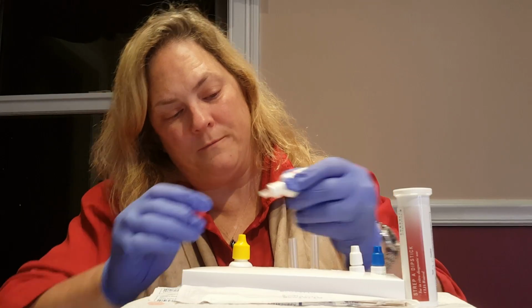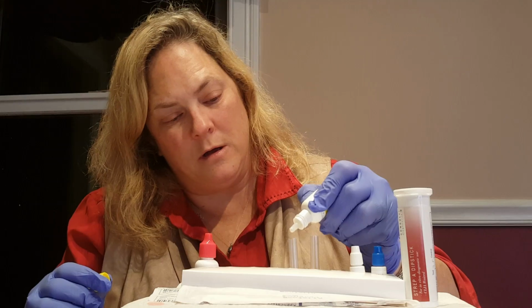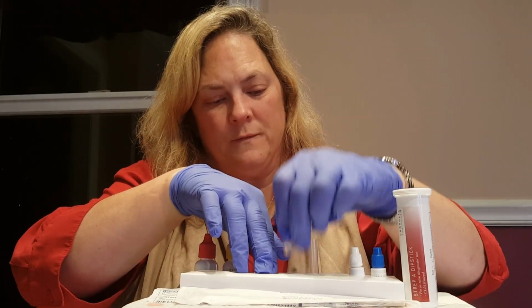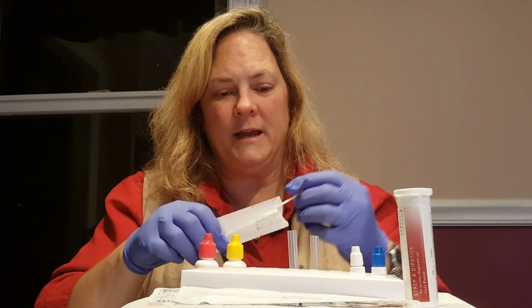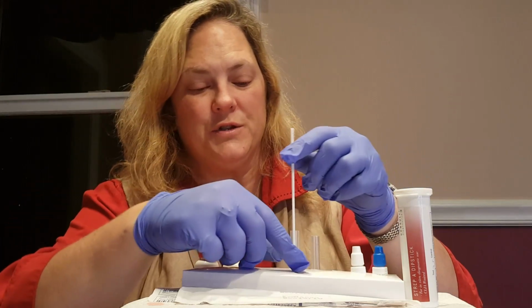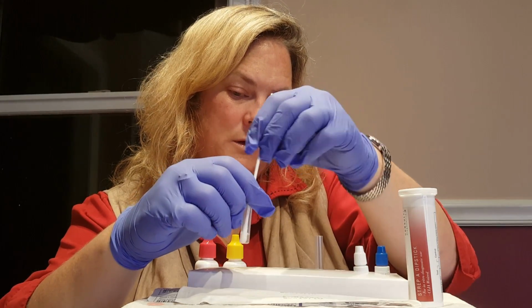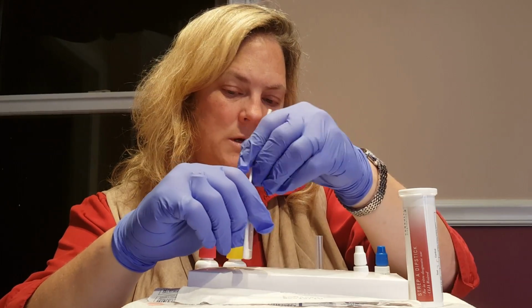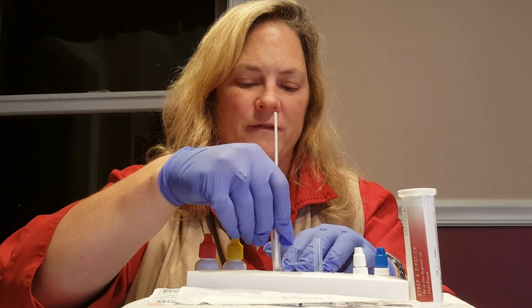into the tube of number 1, and then we will place 4 drops of number 2. Give that a gentle swirl to ensure it's mixed. We'll then take our sample swab and insert it into the test tube. And I'll try to show you. We're going to swirl that 10 times to ensure that we get enough of the specimen sample mixed in with the fluid. And then we will put that down and let that sit for a minute.